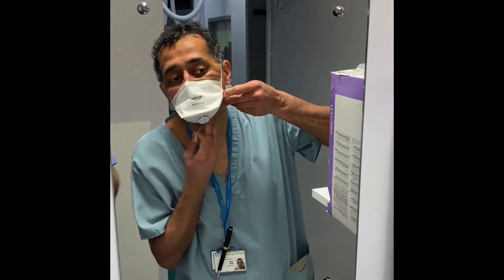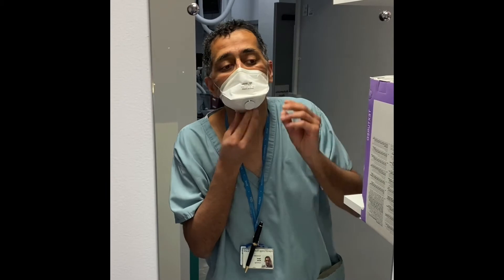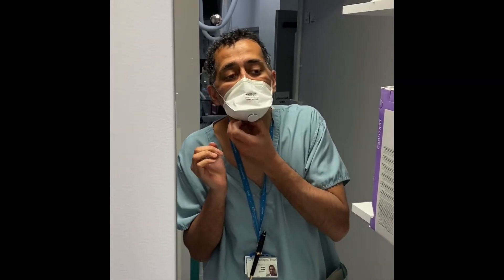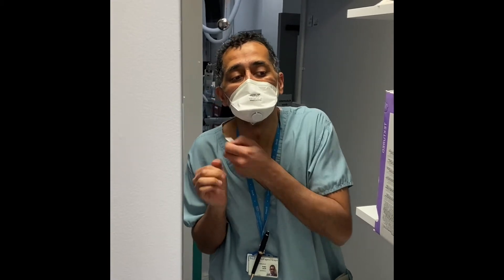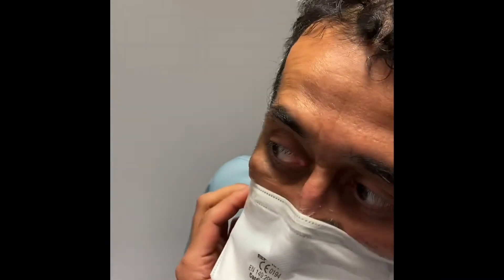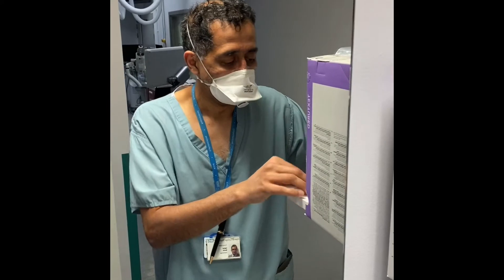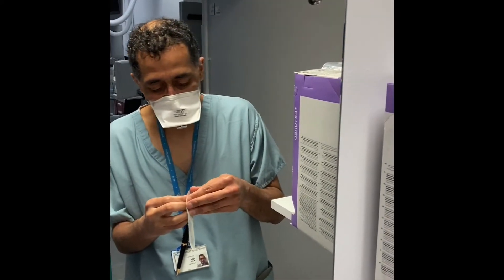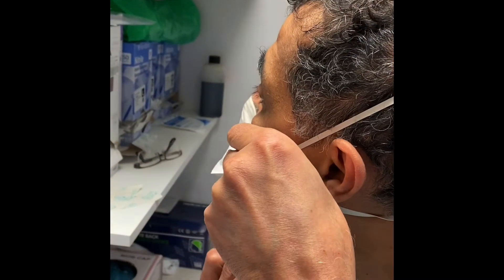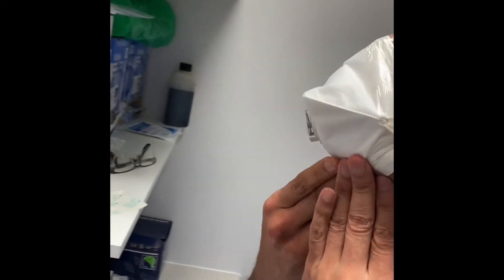I'm sealing up all the way around, then taking the paper off. That's already taking the cover off. It becomes rather difficult but the paper is beginning to come off. I'll place another one — hopefully the last one — and I've got to make sure I cover the join and cover my chin.